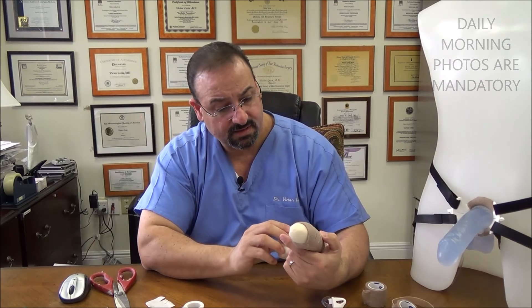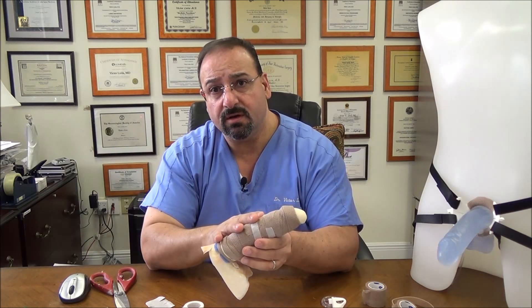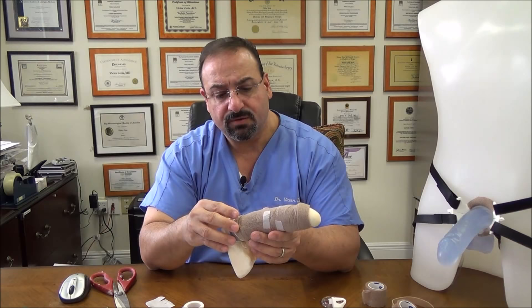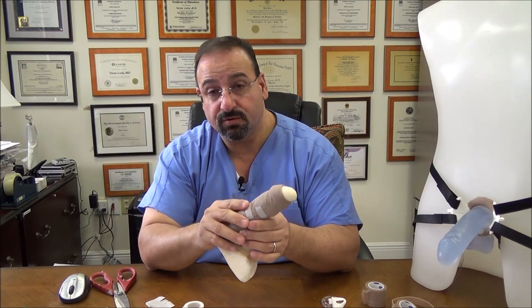The wrap is very important to do correctly. You'll be taking pictures every morning and sending them to us so we can evaluate your wrap. We'll be watching for a whole host of things. But in essence, there is your wrap — that's how this works. Hopefully this was helpful — review this video as often as you need. There will be other videos with troubleshooting details on how to adjust certain elements. But this is the shorter version of how to put your wrap on.